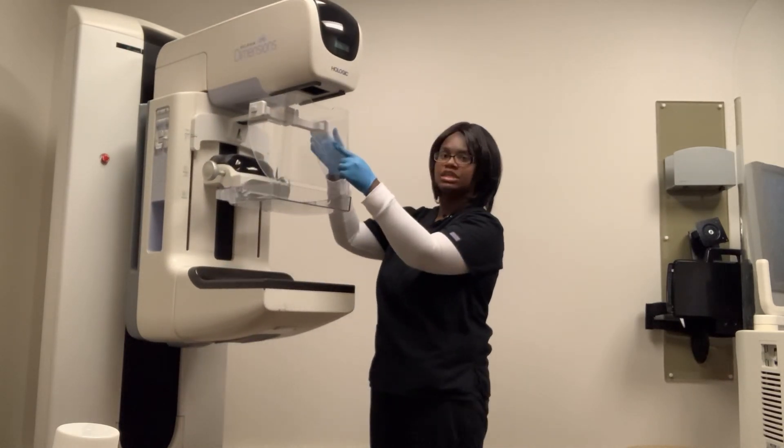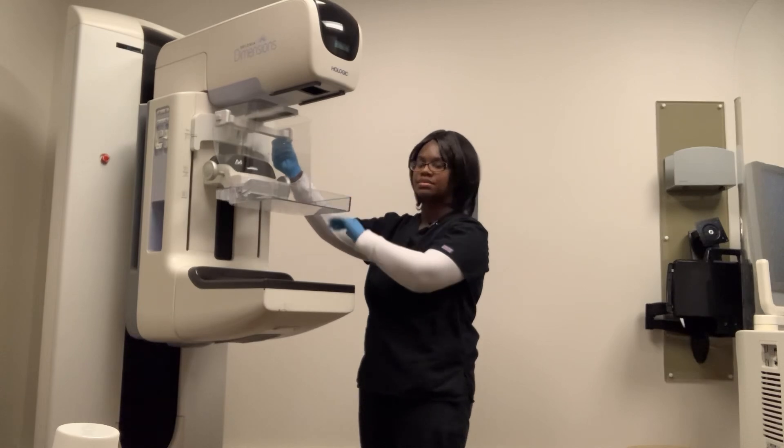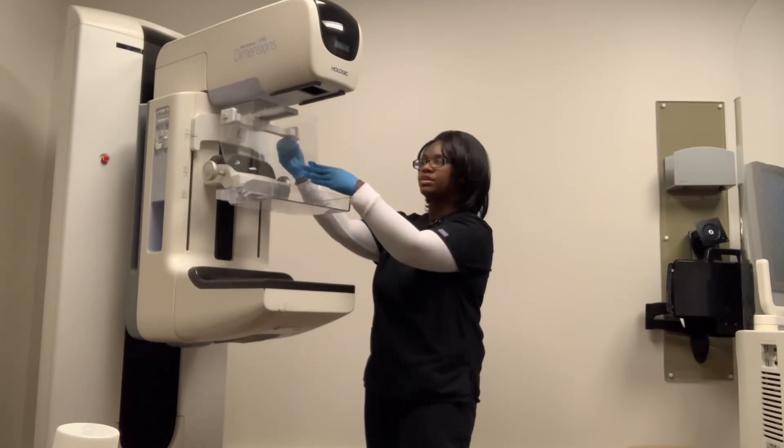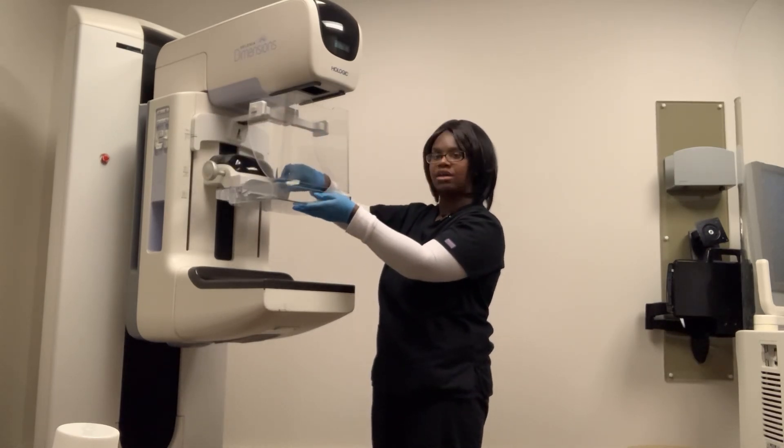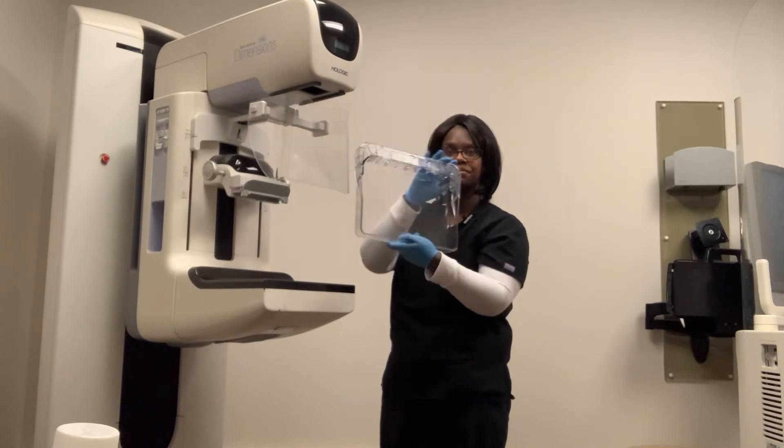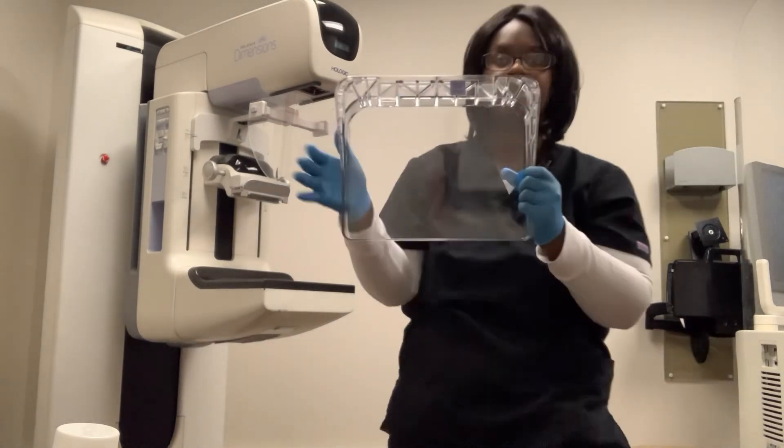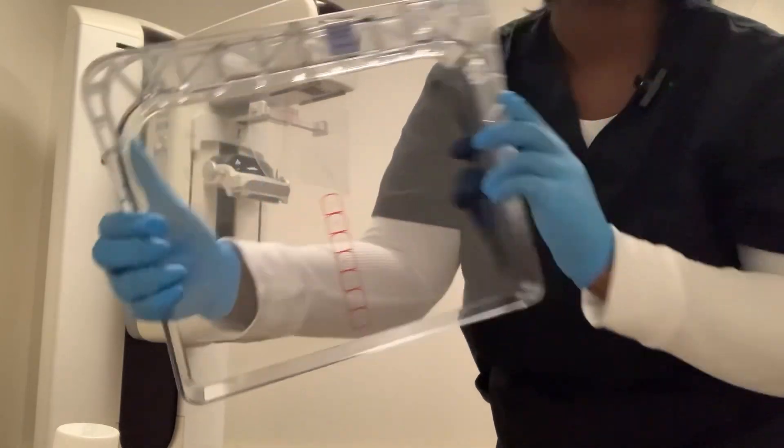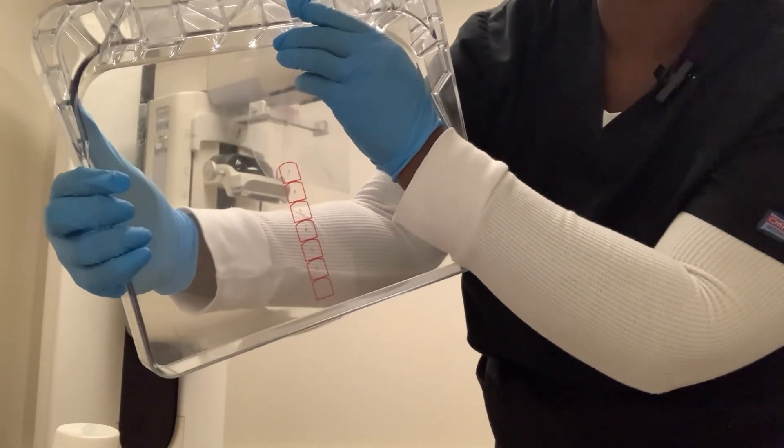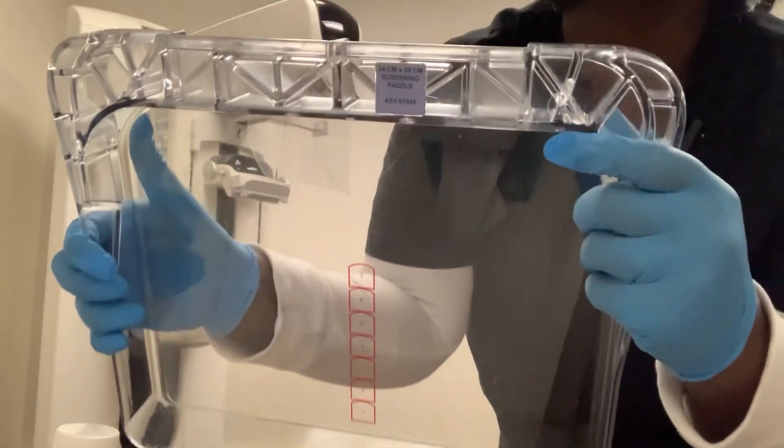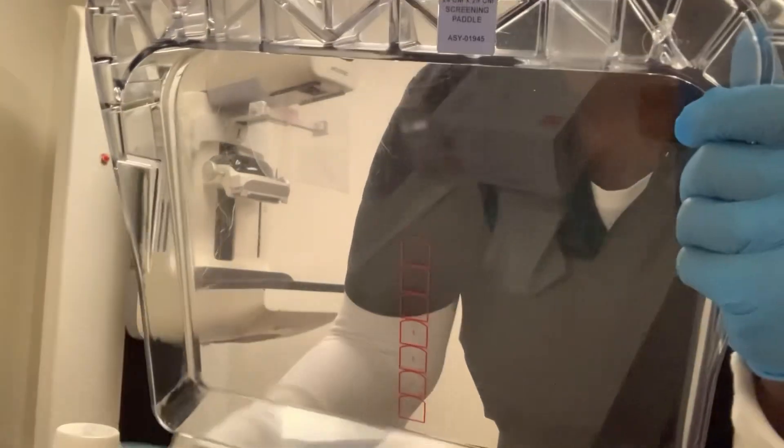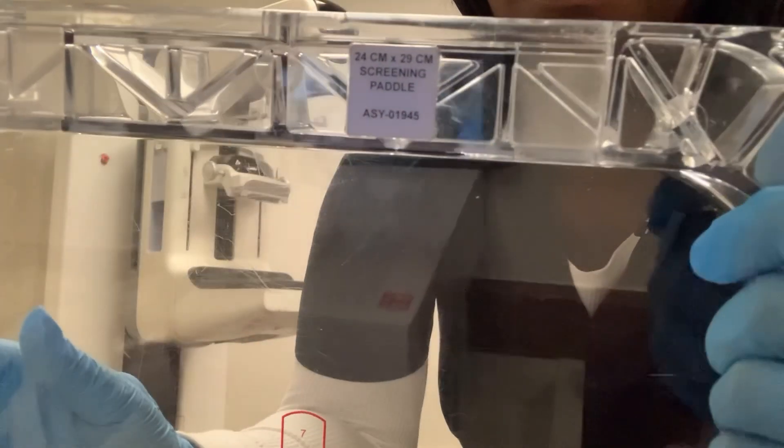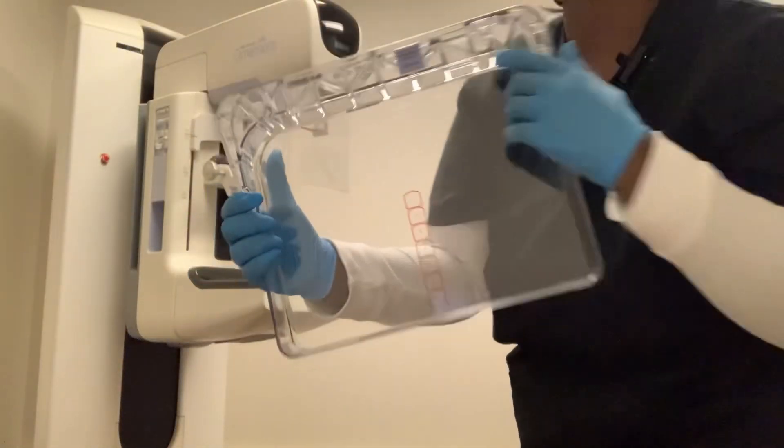The face shield, you can move it back or move it forward. This paddle does come off. And then this is your large paddle. And then right here, it's a 24 by 29. If you can see that. And then I will put it back.